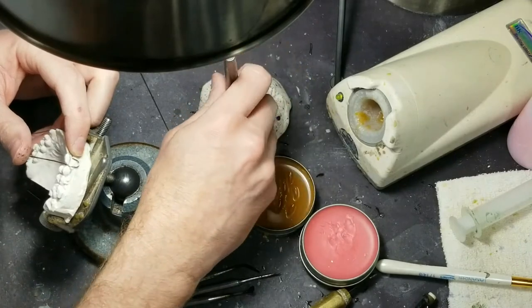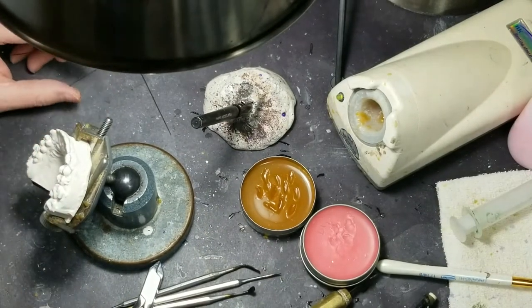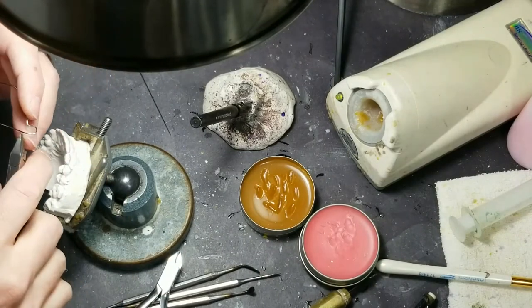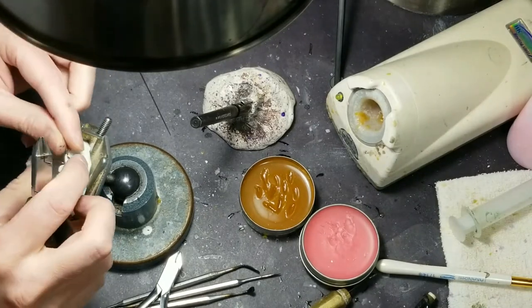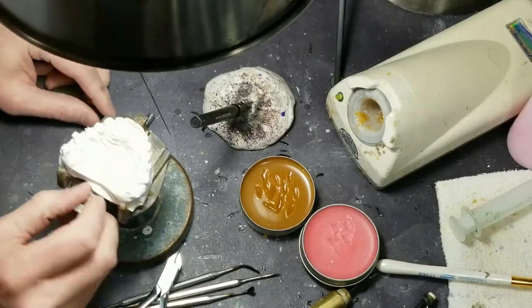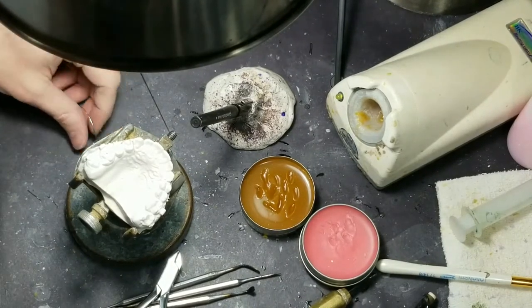Ruben asks: how can I find a parallel survey table like yours or similar? I'll put a link to it — it's at greatlakesortho.com. My son's going to type it in the chat. This model holder is my favorite — it's kind of like a surveyor table. It's got a great ball joint. You had to put spaces in it because it won't let me put links in the chat. Just do a search for model holder and you'll find there's three or four of them.